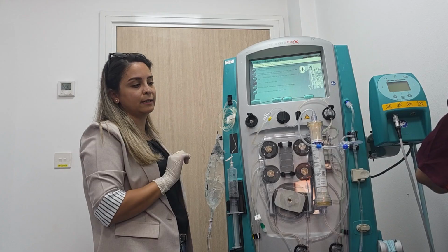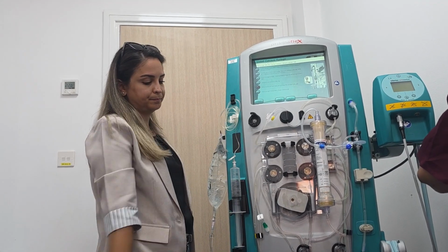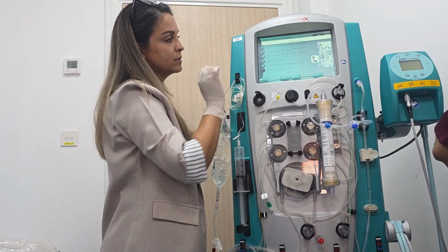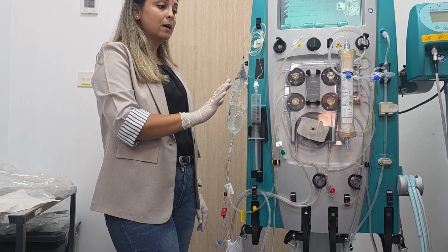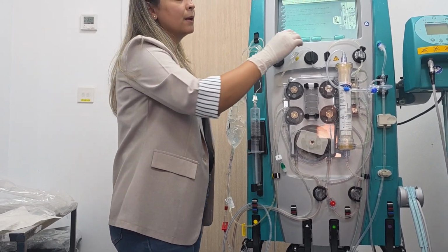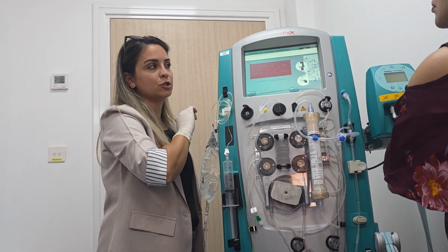Next, hang the calcium line in the clip. So here we fix it in the clip. Then press auto up. Next, close the plunger clamp latch. So we put this in the center so we can close the plunger. Till now, don't connect this line to the patient. Then we will press continue. Now let's confirm syringe installation.